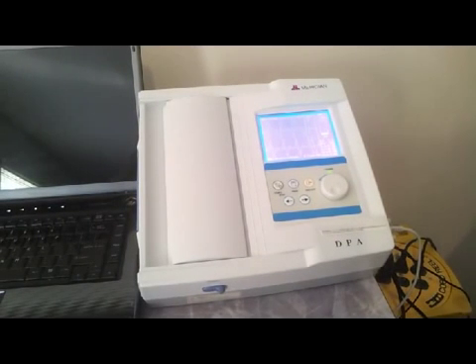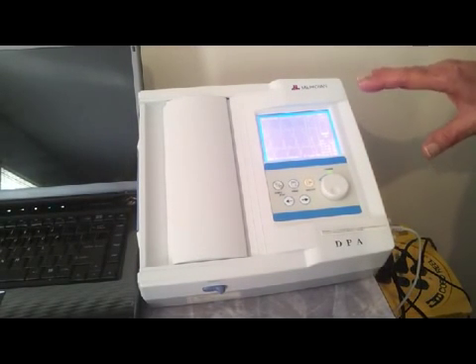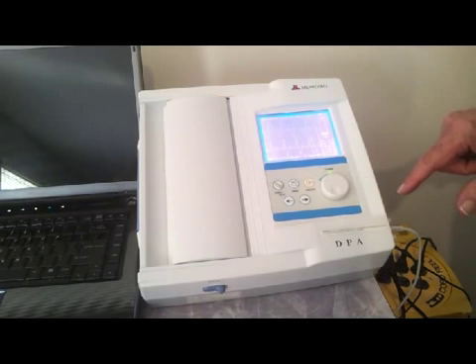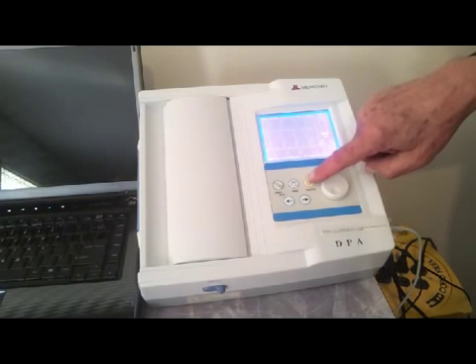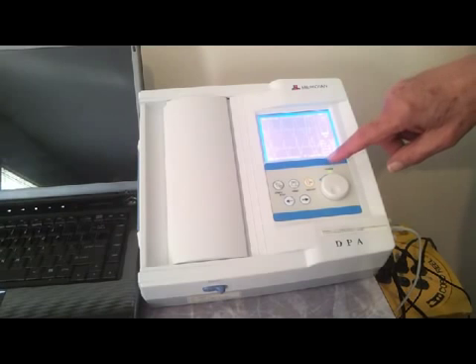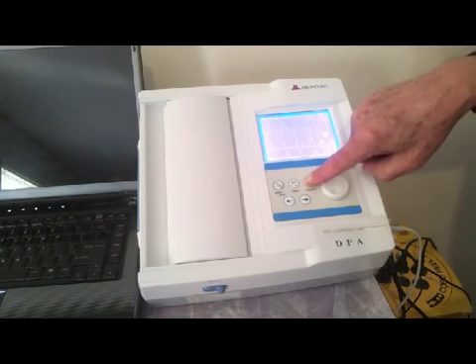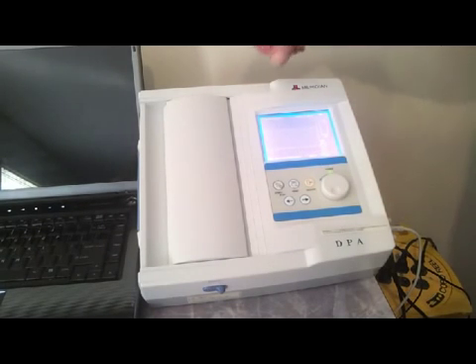We're going to show the Meridian DPA running in standalone mode without a computer. So in this case, all you need to do is enter your information — if you want to enter information for a patient or not — just hit the start button.